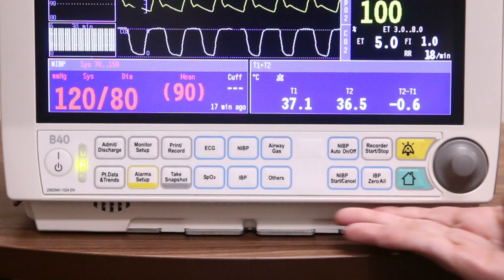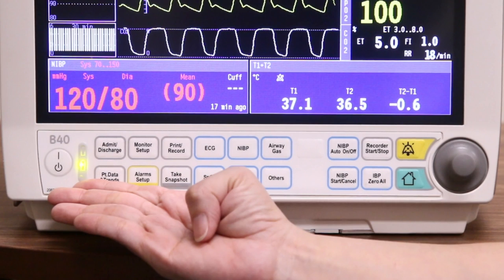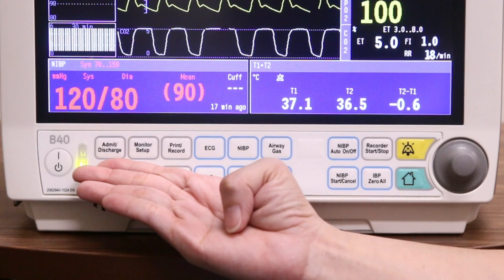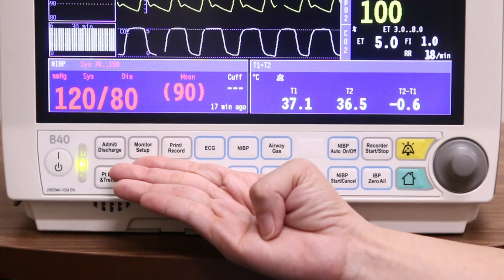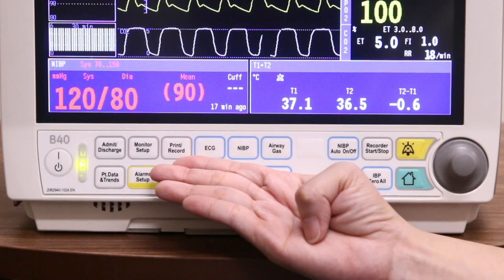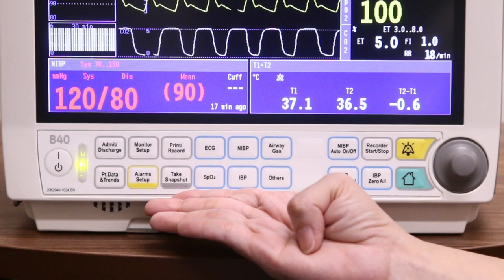Now we go to the command board keys. First, we have the on or standby key, followed by the main power and battery LEDs, which indicate main or external DC power. The admit or discharge button is for admitting or discharging a patient and for selecting user modes. Patient data and trends is for viewing trends and alarm history. Monitor setup is for setting up the monitor and for activating the help menu. Alarm setup is for activating the alarm setup menu. Print or record is for printing and recording different trends and waveforms. Take snapshot is for taking up to ten snapshots.